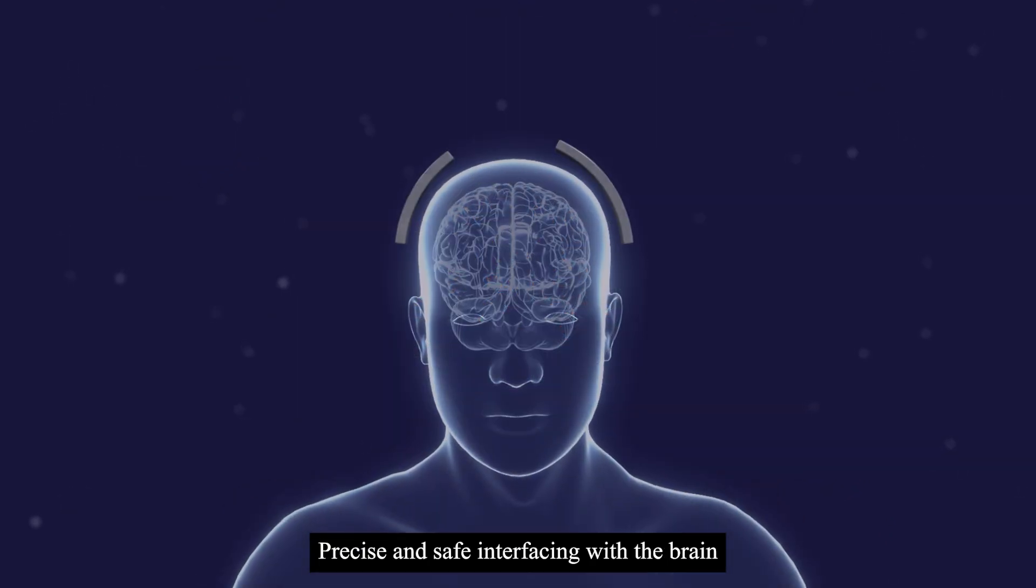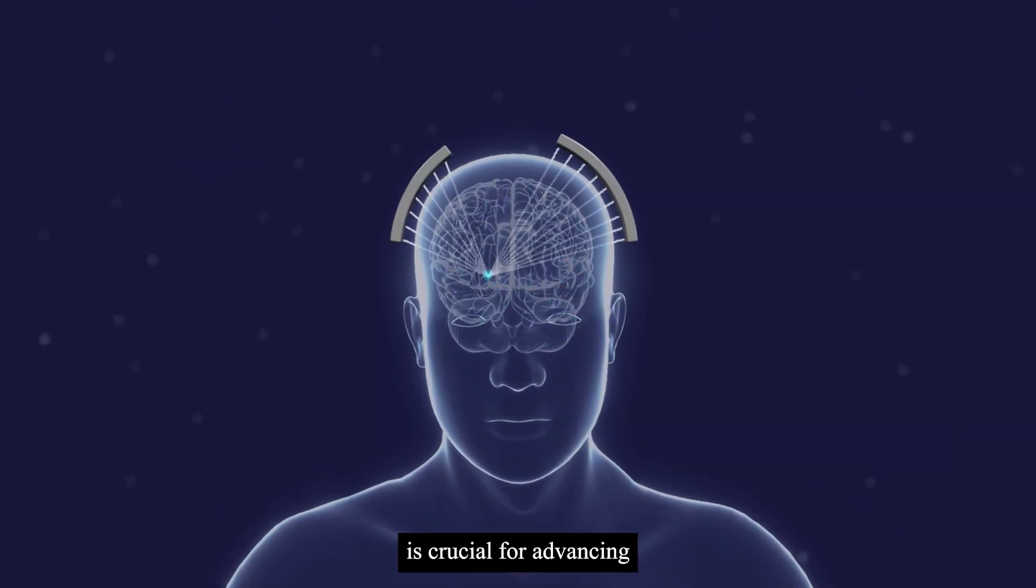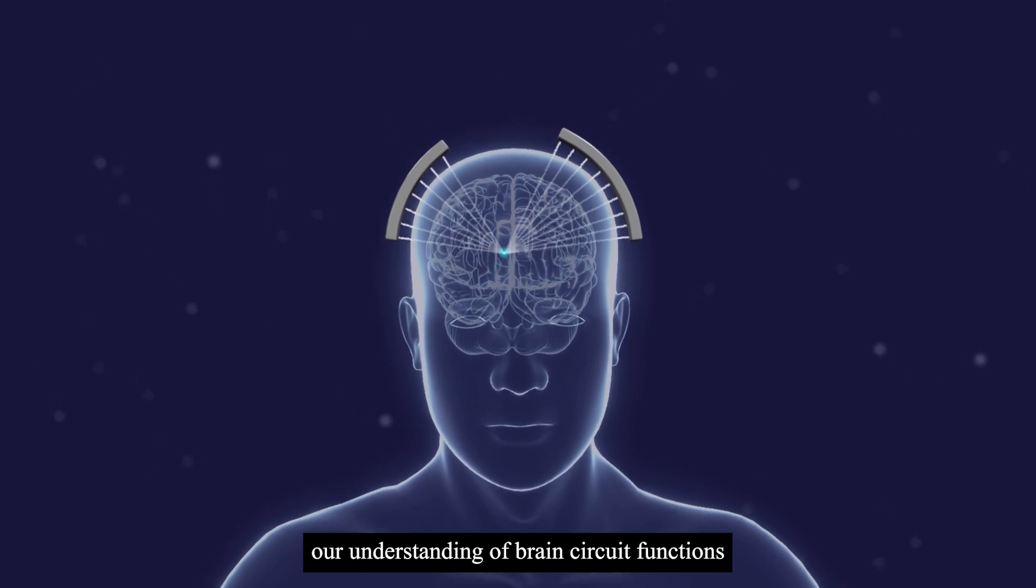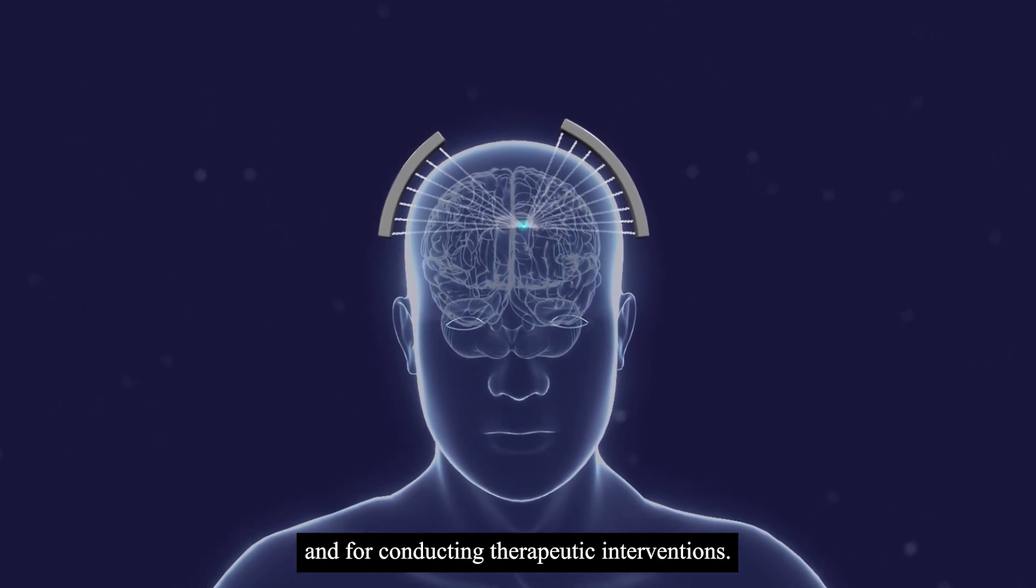Precise and safe interfacing with the brain is crucial for advancing our understanding of brain circuit functions and for conducting therapeutic interventions.